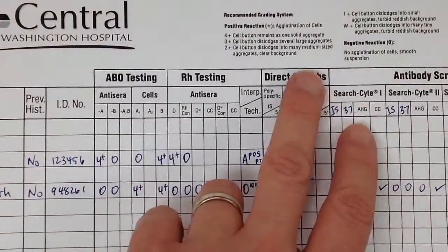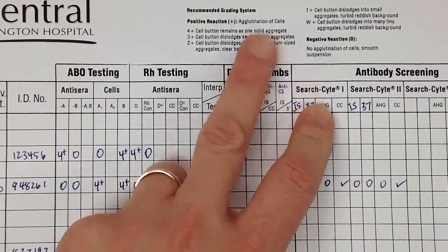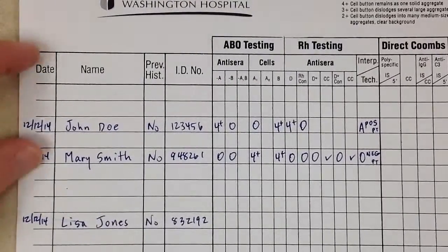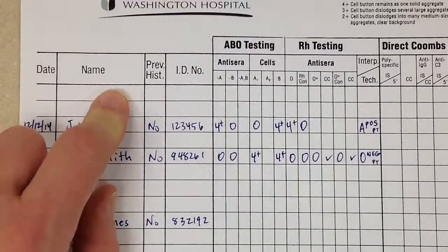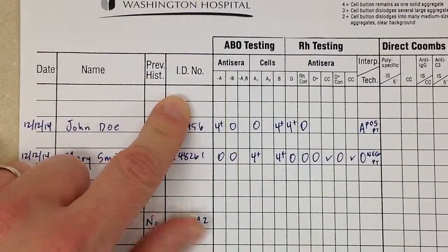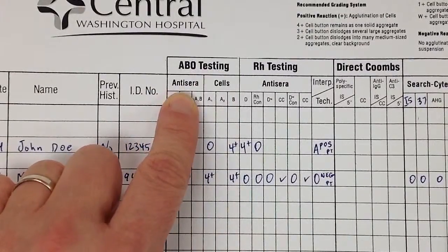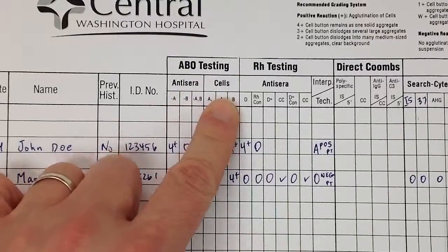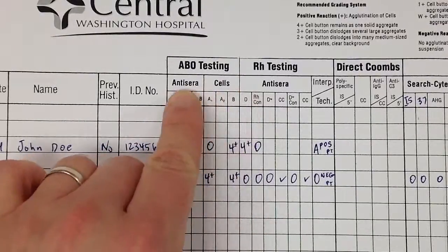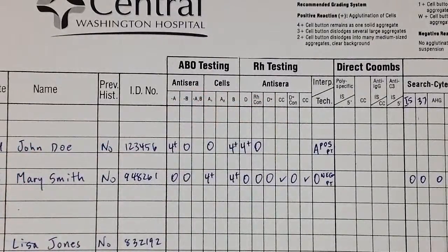On this particular one they have at the top the recommended grading system, which can be helpful for beginners. Over here we have date, name, previous history, and ID number. Over here we have ABO testing - we have the forward section labeled 'antisera' and the reverse section labeled 'cells.' The antisera refers to the reagent being used.